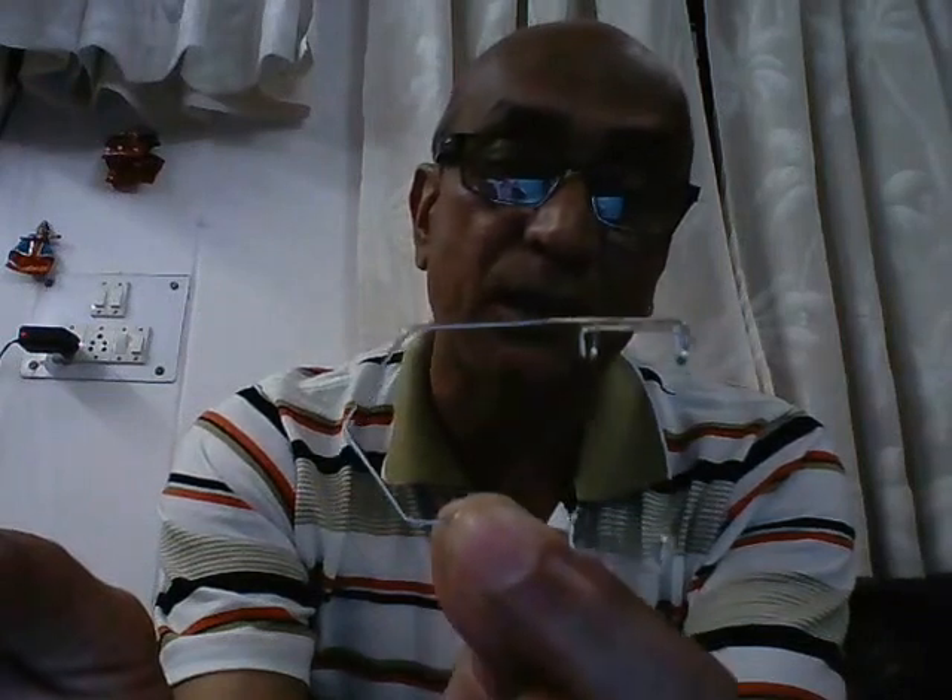As we can see, this is made of simple highly springy wire. That's why it is referred to as a wire speculum. And just like the previous speculum, this is also universal — it can be used in either eye.